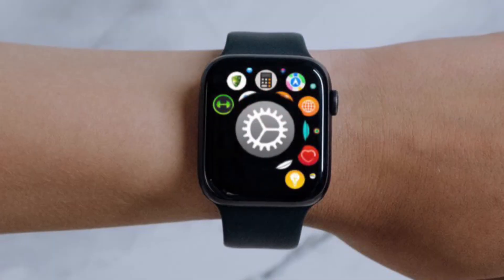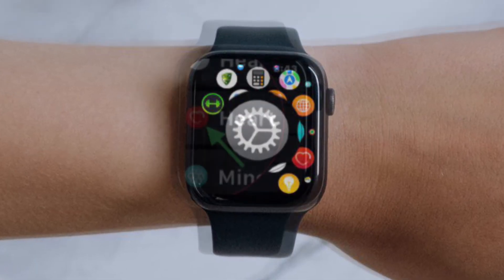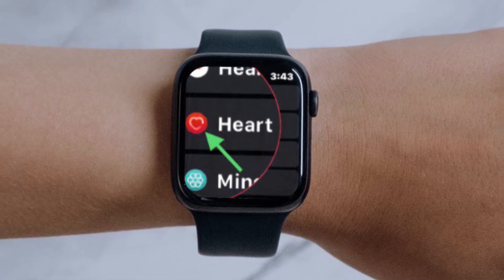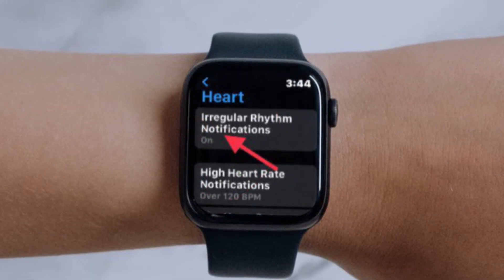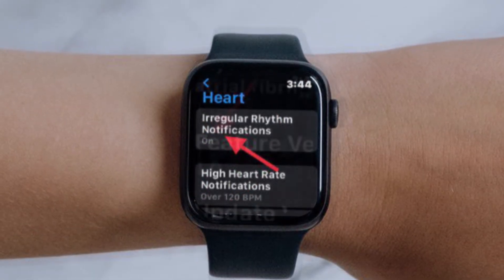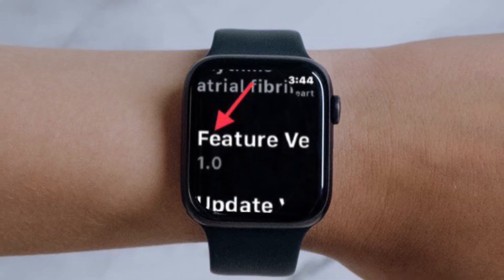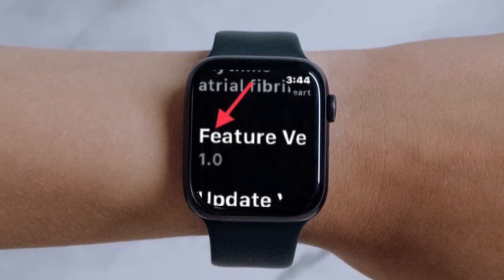First off, open the Settings app on your Apple Watch, then scroll down and select Heart. Then tap Irregular Rhythm Notifications. After that, scroll down to view the version number. That's pretty much it.